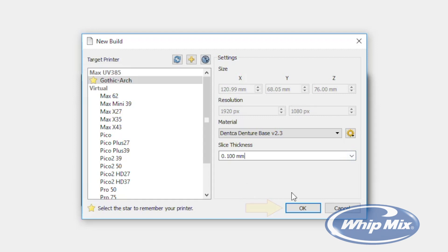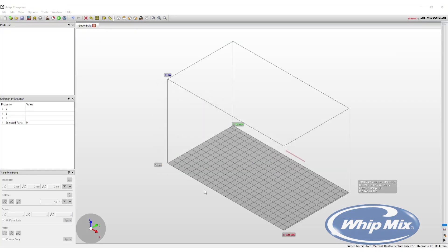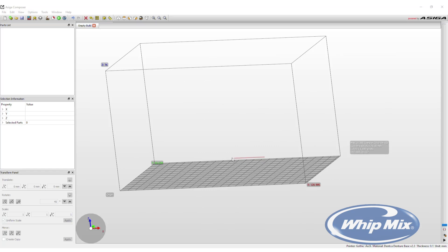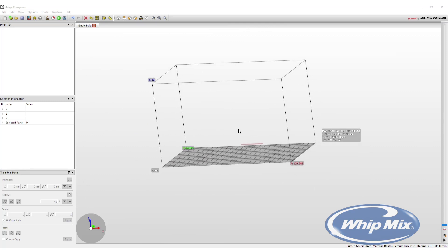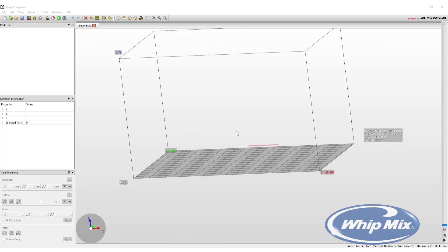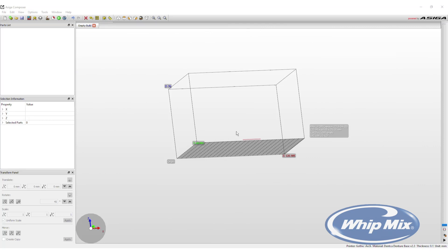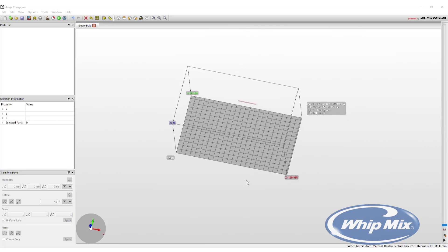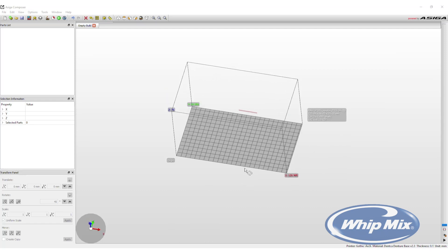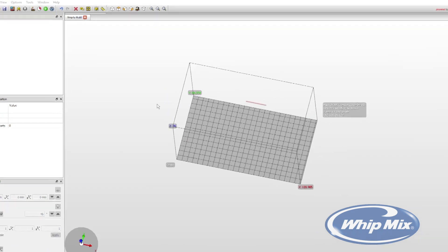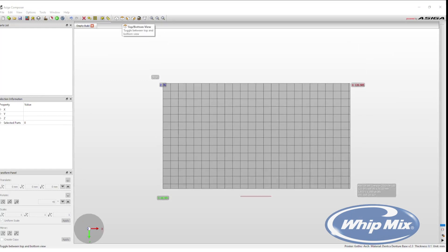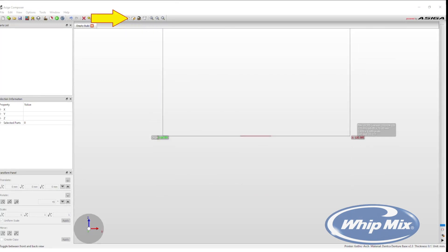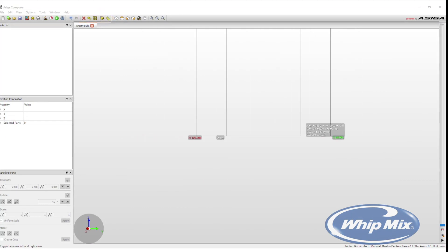Select OK to open up the build plate envelope — this is where the STL files will be imported. There are several ways to view the build envelope. To move the envelope around, press right-click and hold while moving the mouse. The scroll wheel controls zoom in and out. To pan the envelope to a different section of the screen, left-click and hold while moving it. View options are also located on the toolbar along the top, where you can select top, bottom, front, rear, left, or right side views.